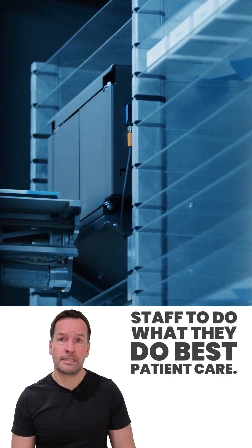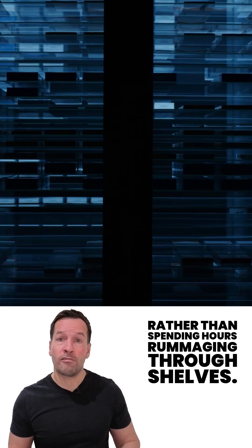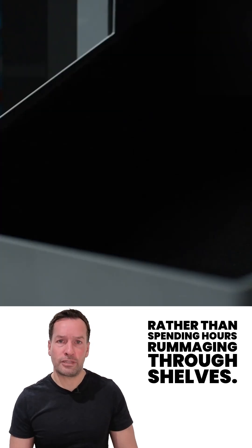freeing up human pharmacy staff to do what they do best. Patient care, conversation, ensuring safety. Rather than spending hours rummaging through shelves.